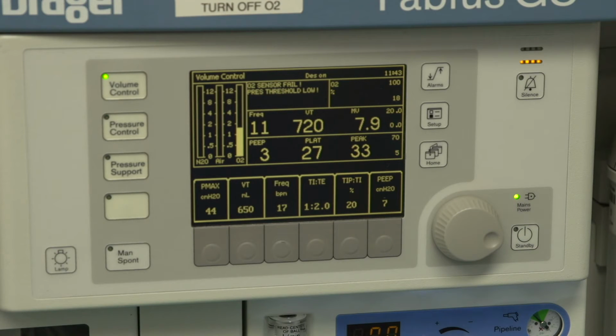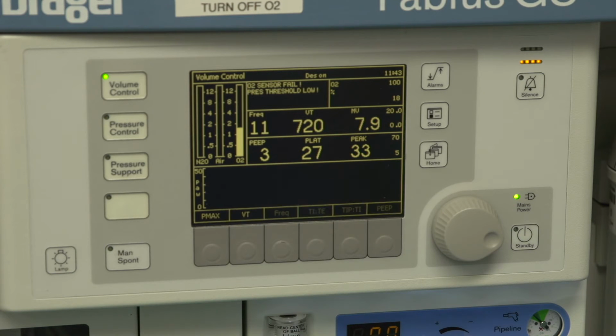Remember, there will always be a delay after any change in ventilator settings, so confirm after at least 1 minute to ensure that your delivered minute ventilation has increased, as actual tidal volume can often be less than set tidal volume. For example, when inspiratory flow rate is inadequately set or the peak pressure limit is exceeded, actual tidal volume can be less than the displayed set tidal volume when the set tidal volume is not being fully delivered.